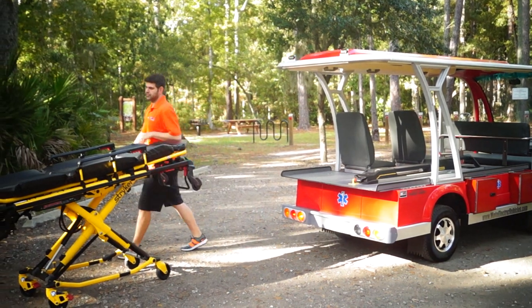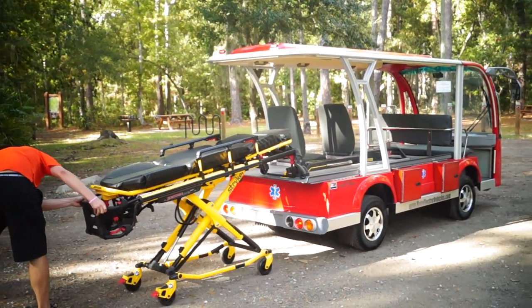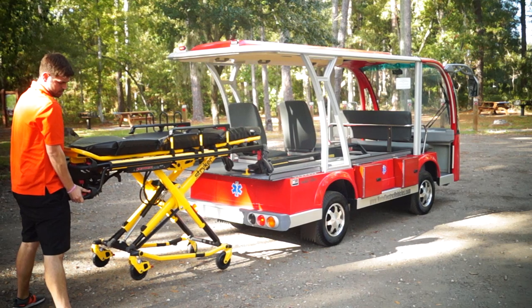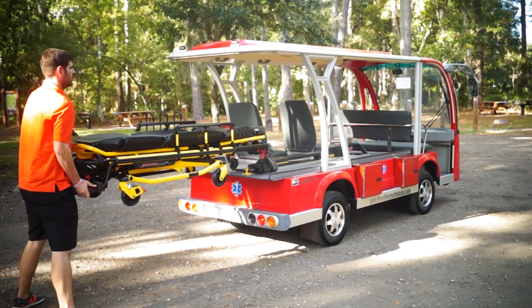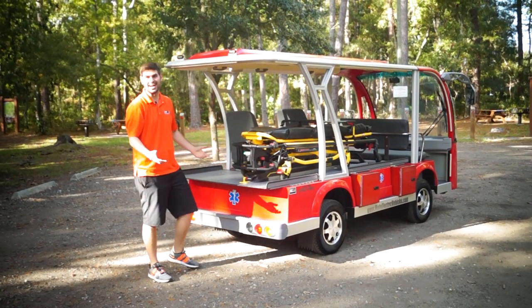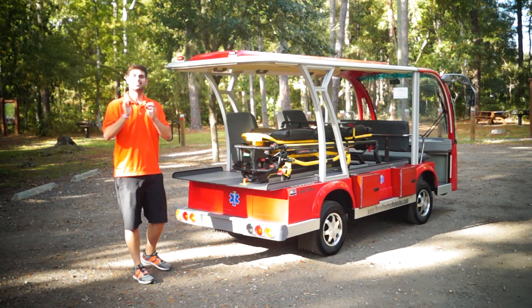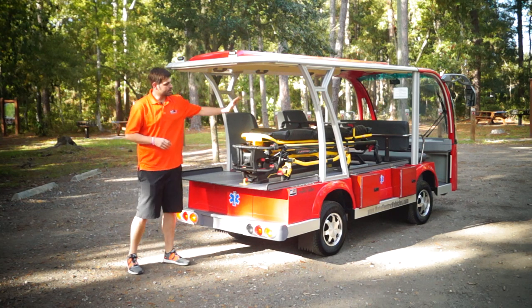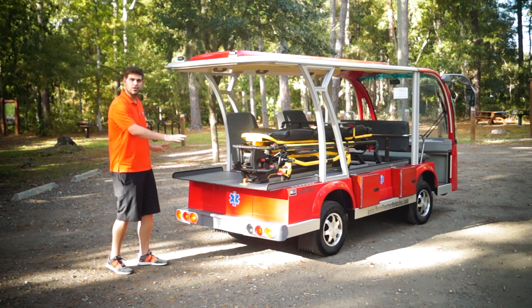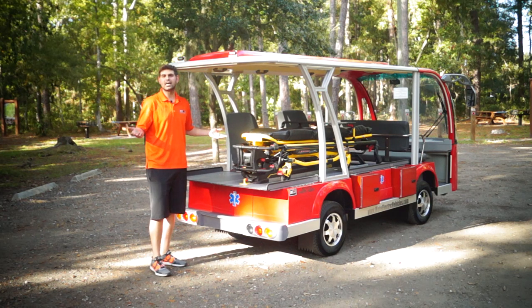I'm going to put it back on and show you how this works. You bring it over, you have a patient on there, and the great thing is it actually lines itself up for you — lift it up, it guides right on there and locks into place. This is one of the best vehicles we have ever sold at Moto Electric since we opened in 2006. You've got your Striker stretcher with the power loader, and all your safety lights — blinkers, four-ways, reverse, brake lights — everything's back here.